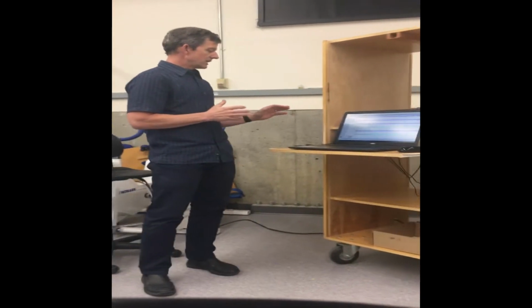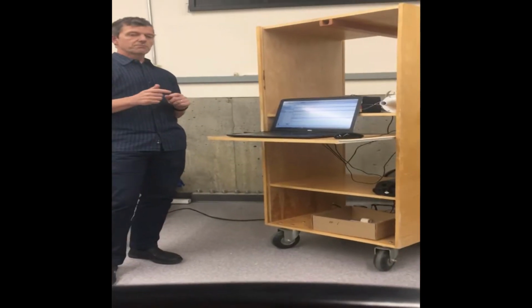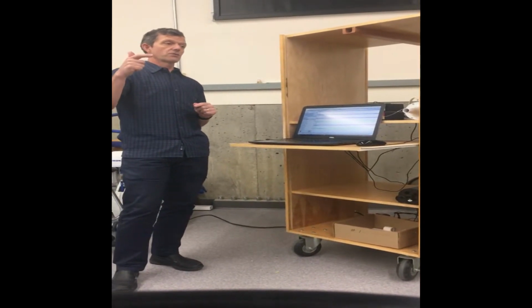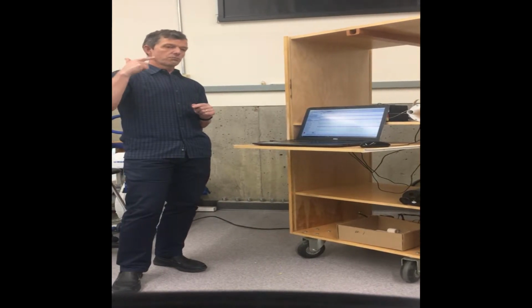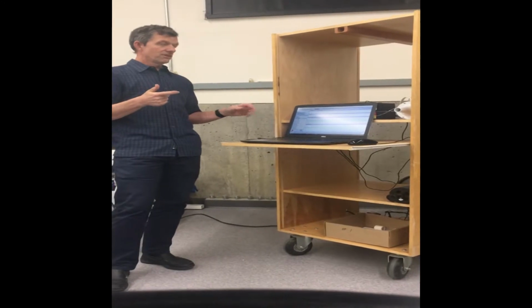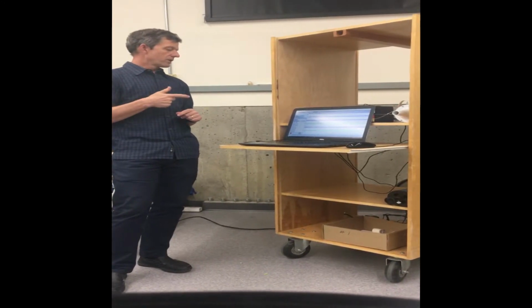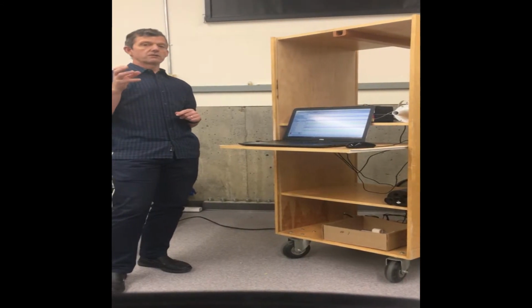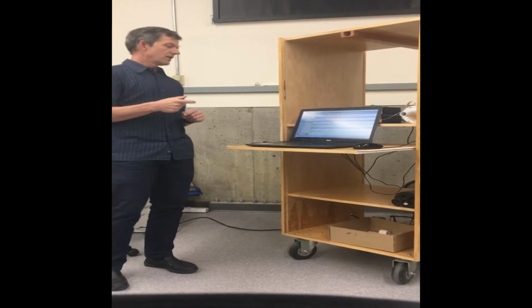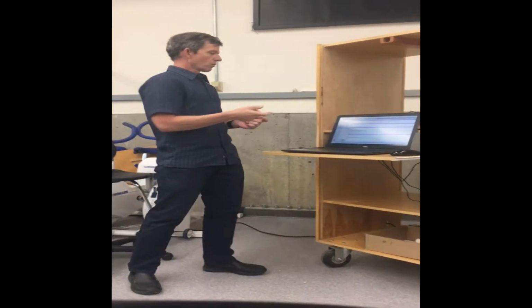The only other thing we need to do with this is we need to put in some setup information. So we're going to click setup. We're going to put subject information in. So we're going to put subject name. The most important thing is to put the subject's weight. If we're getting relative VO2 in real time, it's based on the subject's weight as well. So we can go into setup, and then we can put in the appropriate information, and then we're ready to start. And all we're going to do when we start this program is we're going to hook everything up.